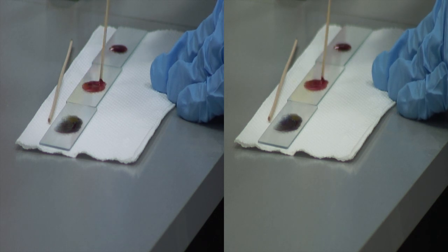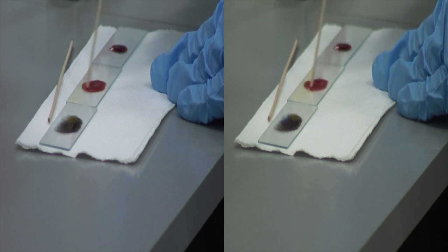The blood and the anti-serum can be gently mixed using an orange stick.